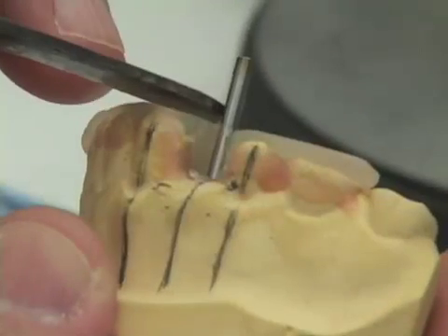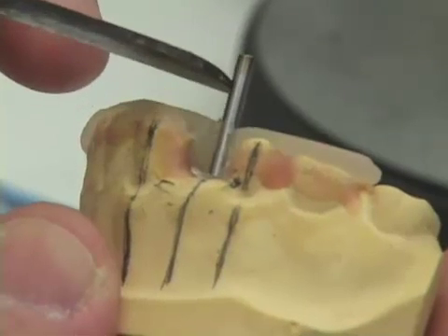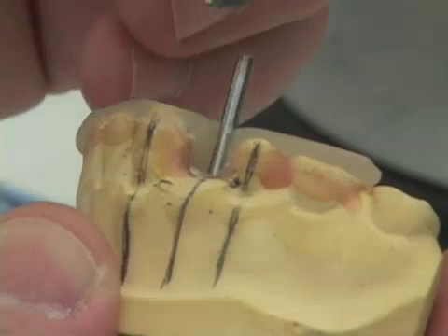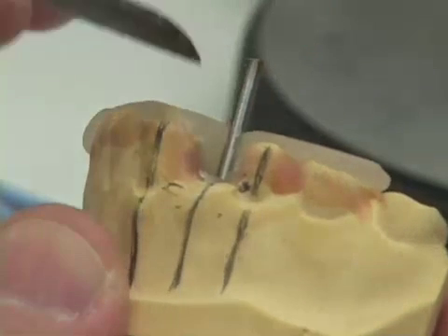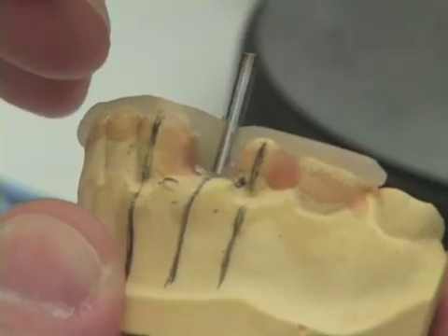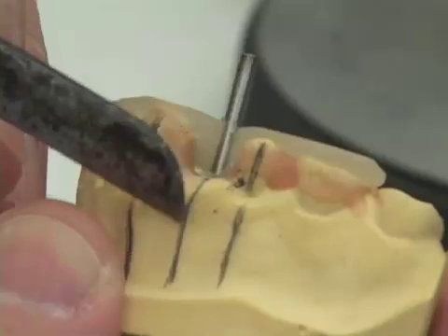The reason you don't want your surgical guide to be a lot taller than the teeth is when the surgeon is in with their drill, drilling down and placing their osteotomy — if the surgical guide is too thick occlusally, the head of their handpiece hits the top of your drill guide and their hole isn't as deep as it needs to be.